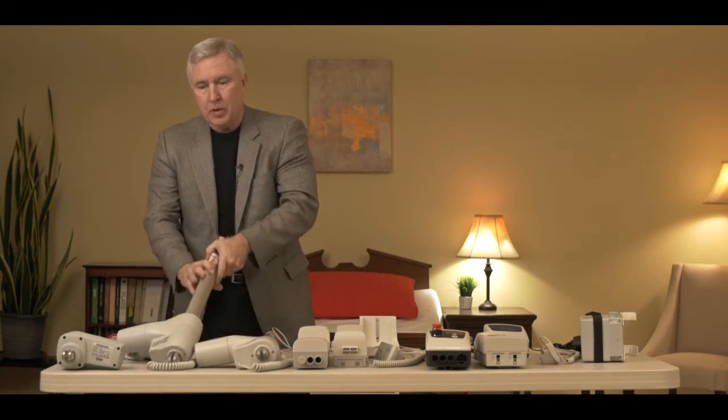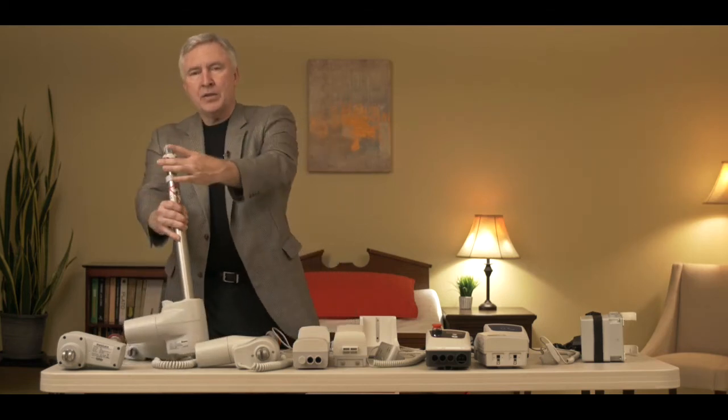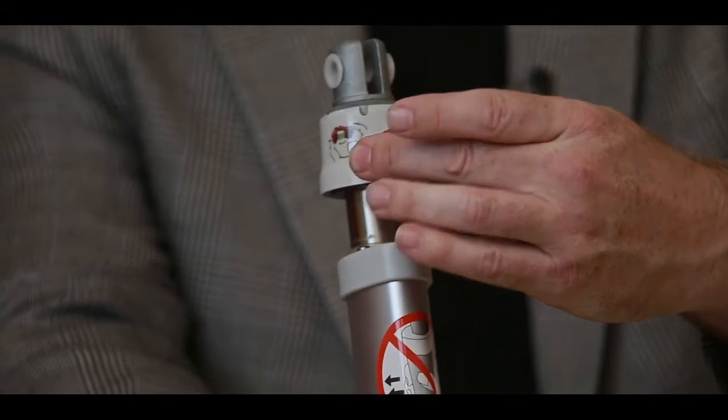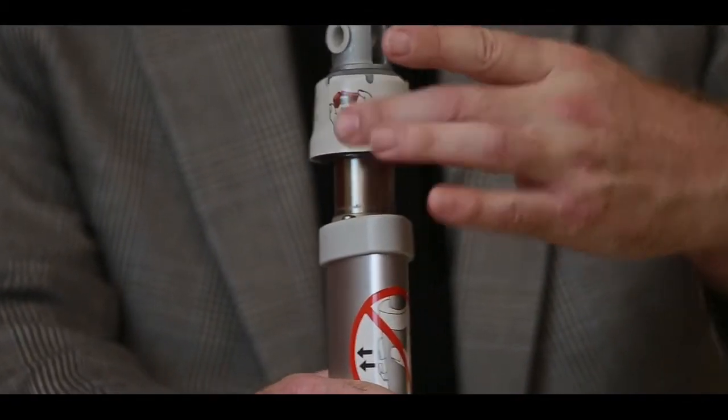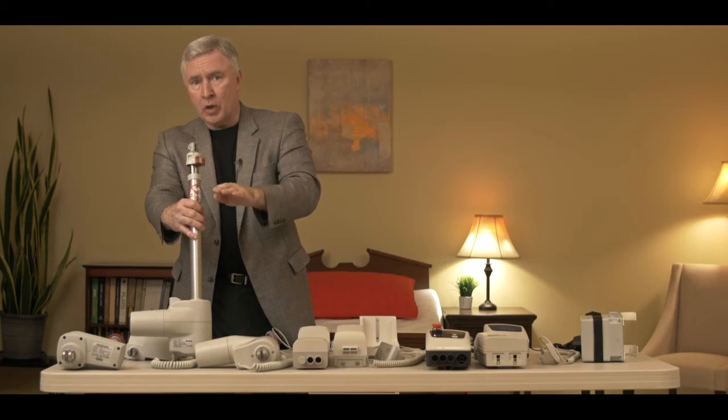The second style you may have has some little red tabs at the top of it. These are manual emergency lowering functions that when you squeeze it, it lowers the actuator down to lower it without power.